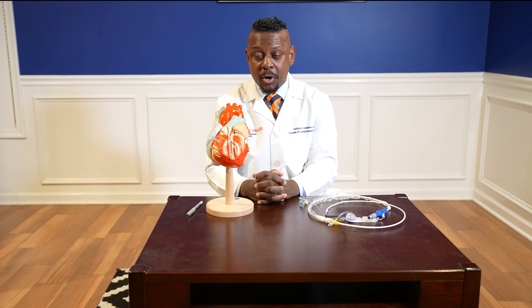Hi, my name is Dr. Anthony Lemaire, I'm a cardiothoracic surgeon. Today we're going to talk about the use of an Impella RP for right ventricular dysfunction. But before we get started, we're going to review the anatomy of the heart, review what right ventricular dysfunction is, and also describe the Impella RP.